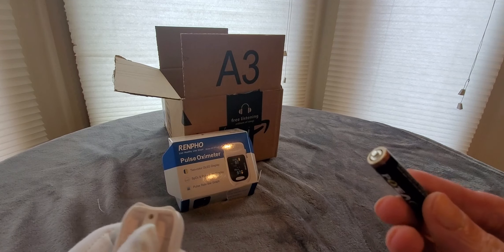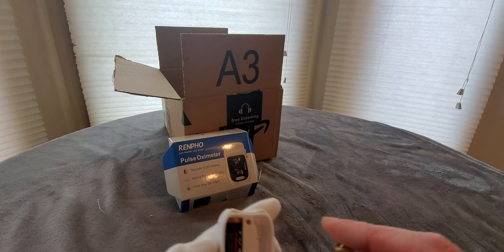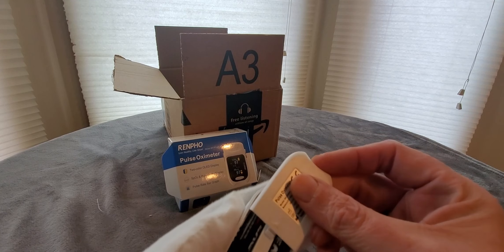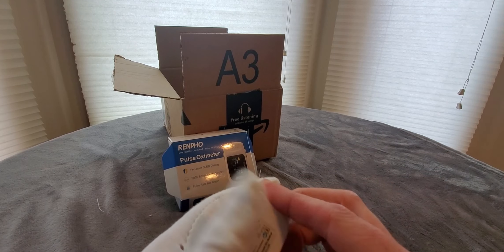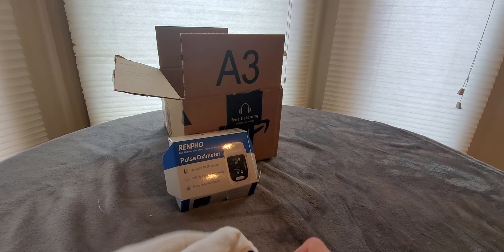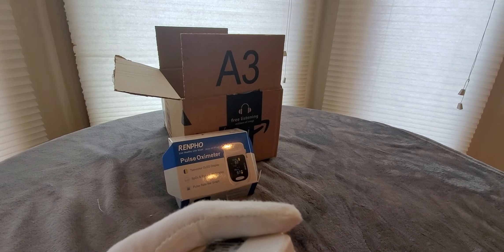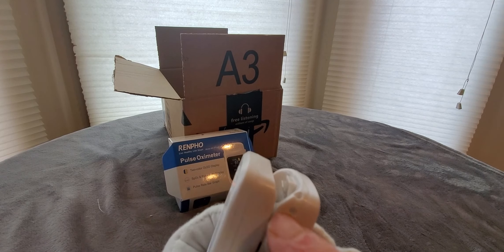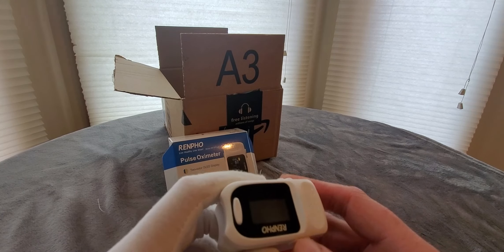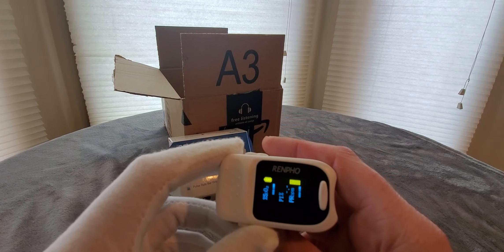Okay, you stick this in here — right there, one, two, and then three. It is a good day. We don't need to hook these up, it's really easy to do — just gotta find the slot right here. Let's run it through. I might try to make this not too long a video for you guys today. Oh, here we go — pulse oximeter!